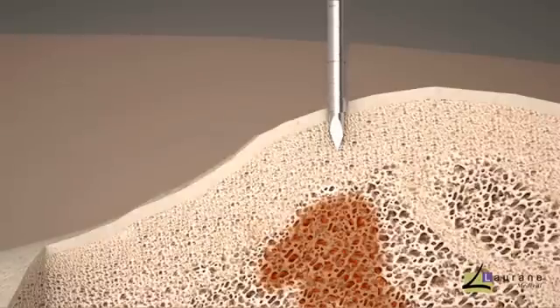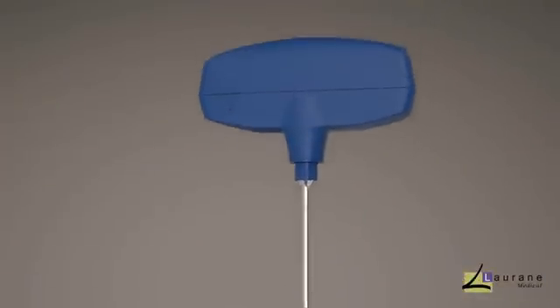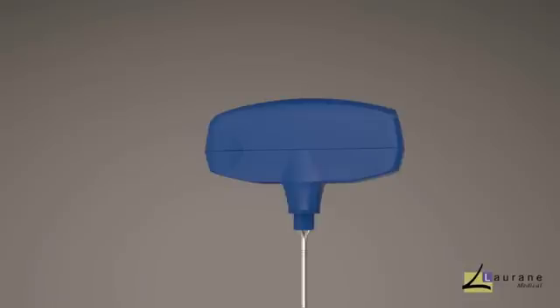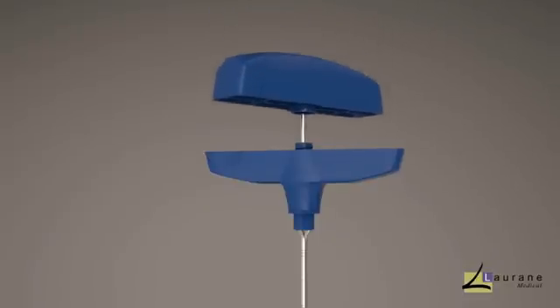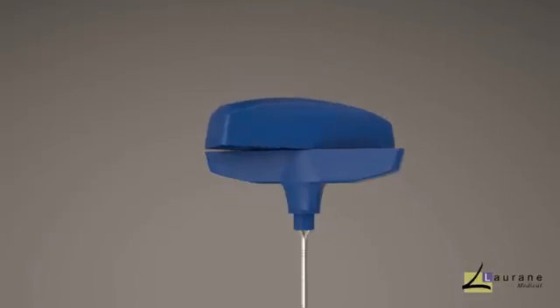Here, if desired, the trocar tip stylet may be exchanged for the drill without losing your place in the bone. To switch to the drill, the handle of the introducer is unlocked by holding the base half, unsnapping the top segment and withdrawing the trocar tip stylet. The drill is now inserted into the cannula. After aligning the triangular impressions on the handles, the drill is locked into place.